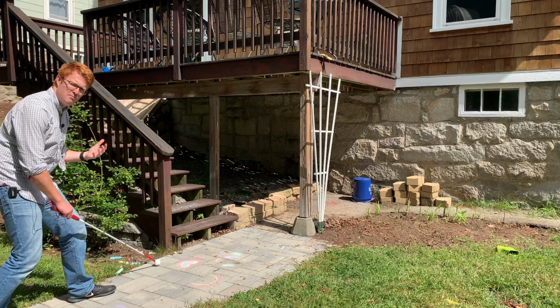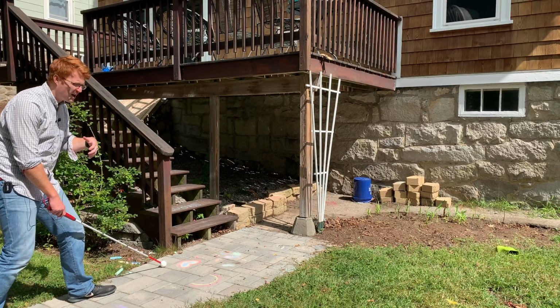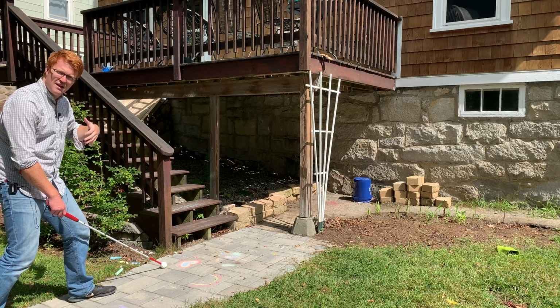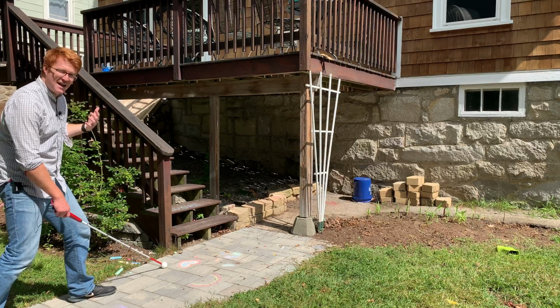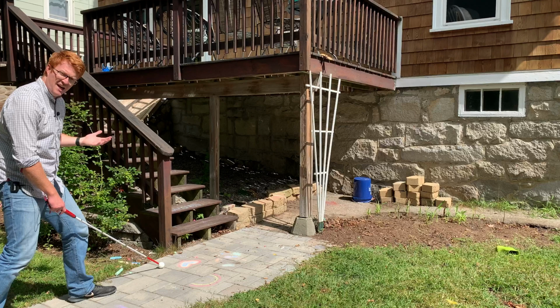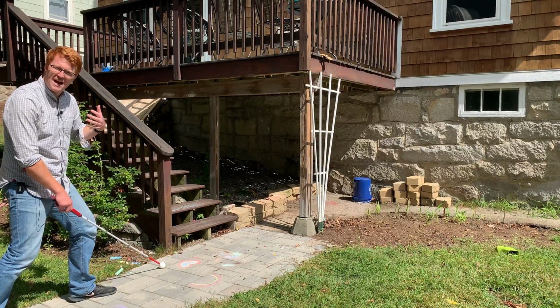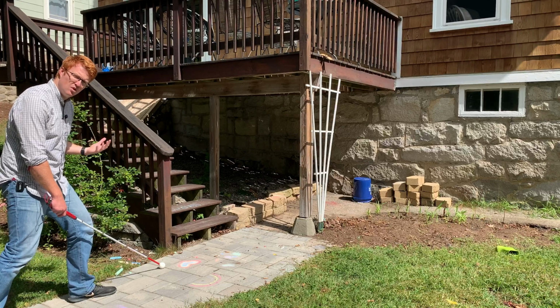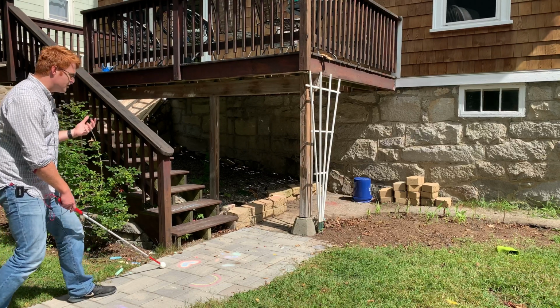So for this demo, I am just using a little pathway in my backyard, and there is a deck. And the deck is lower than the top of my head, so it is a head level obstacle. And the cane will go right underneath it, but my head would find that deck. So if I didn't know it was there, that would really be a serious obstacle that can cause some serious injury.